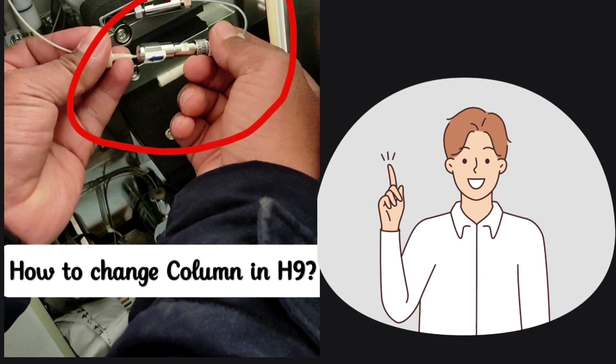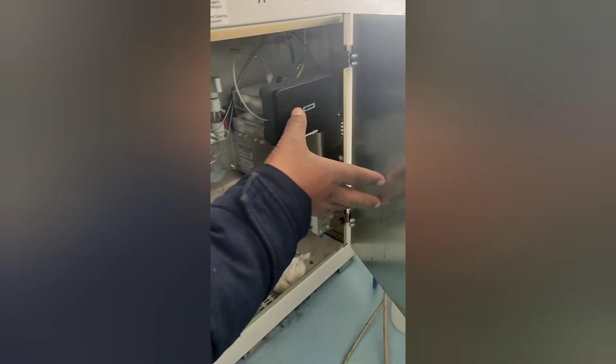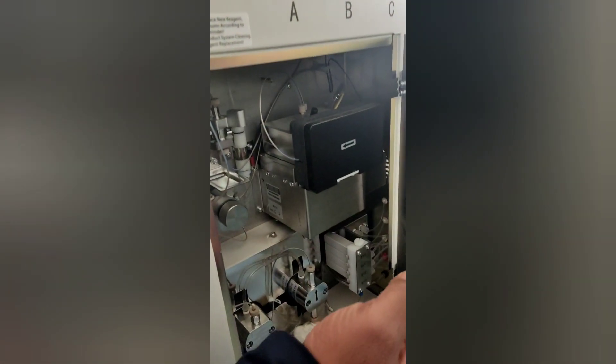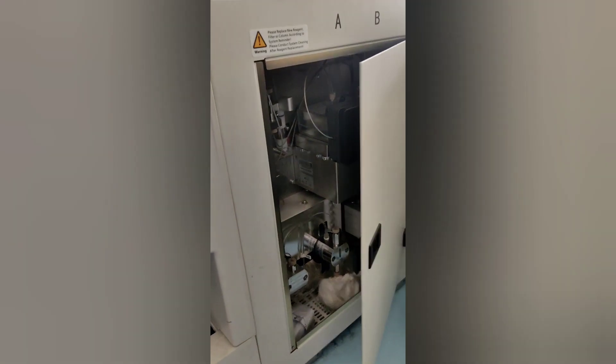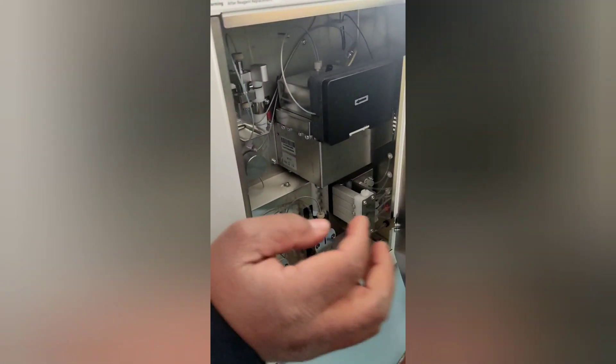First we should know the column position. When you open up the side door, you can see a small rectangular black cabinet showing an arrow towards you. This arrow direction is very important, as when you fix the column, you have to locate it in the same direction. Open the black cabinet where you can see the column.